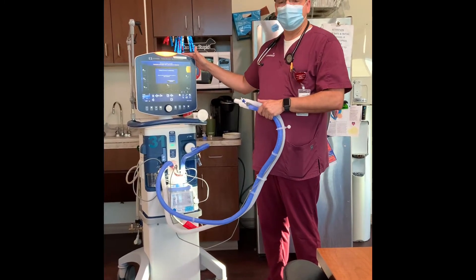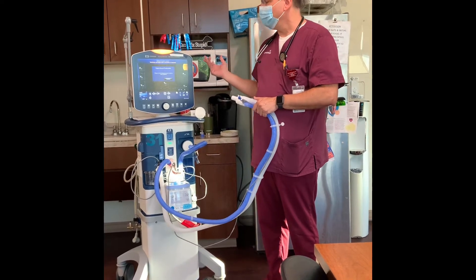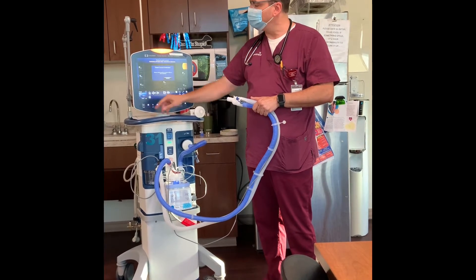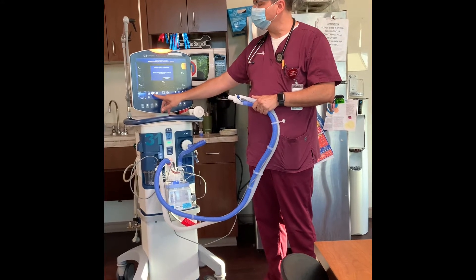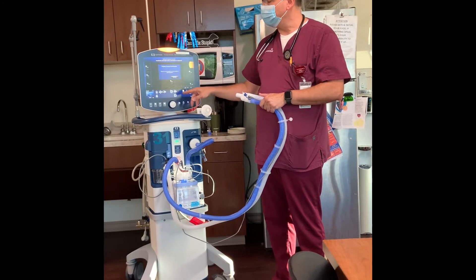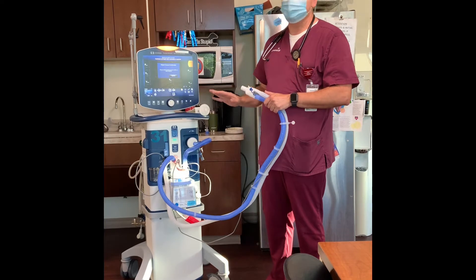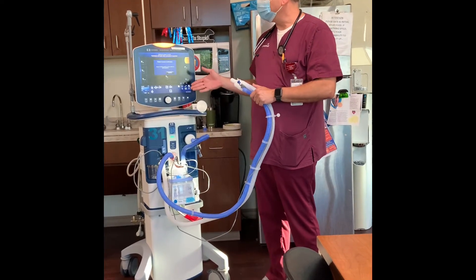When you're giving report to the next shift or the doctor comes in and asks what settings the patient is on, you simply look at this section and say: they're on assist control, rate of 16, tidal volume 420, 100% oxygen, and 5 of PEEP. Those are the only four parameters you really have to report on. Everything else is done for patient synchrony and comfort.